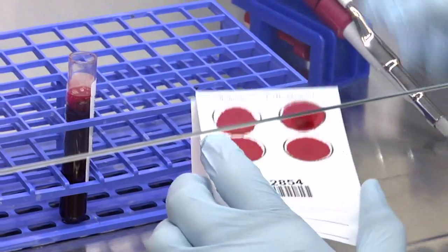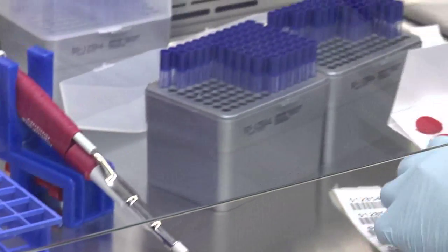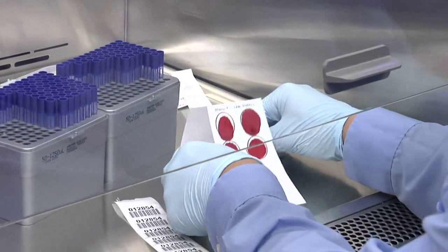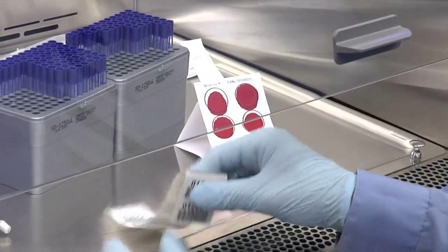After that, place the card back here so it can dry, and the sample is done.